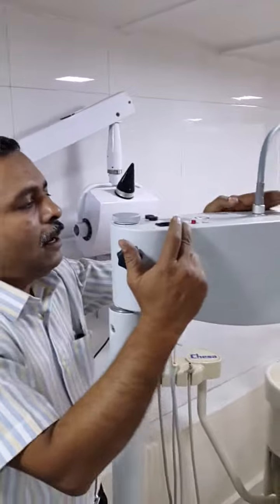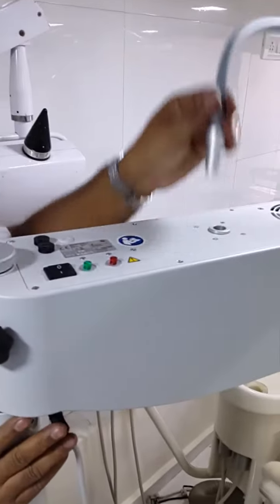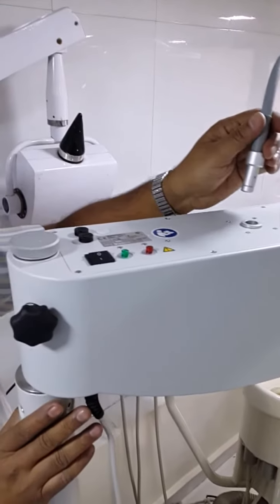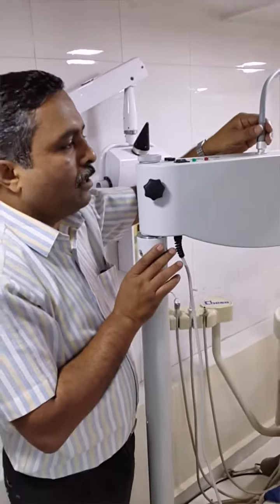Main switch. There is also this feature: if you make it on and the cable is not inserted, the LED will not power. Because there is a sensing mechanism, you have to insert the cable first and then the light will appear.